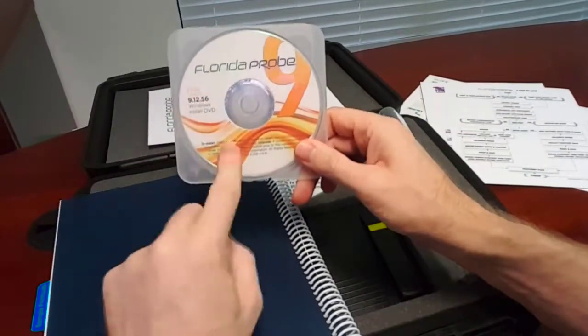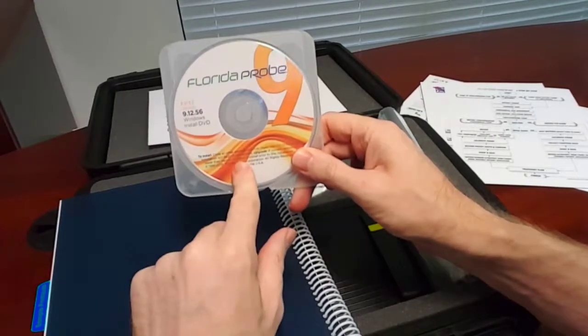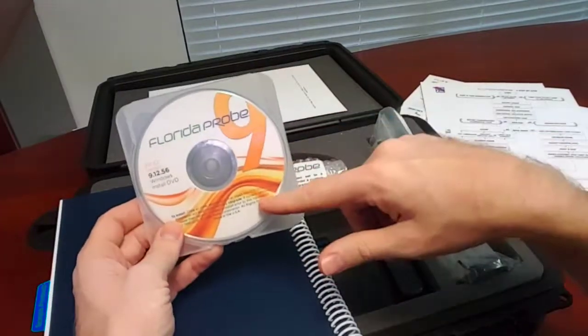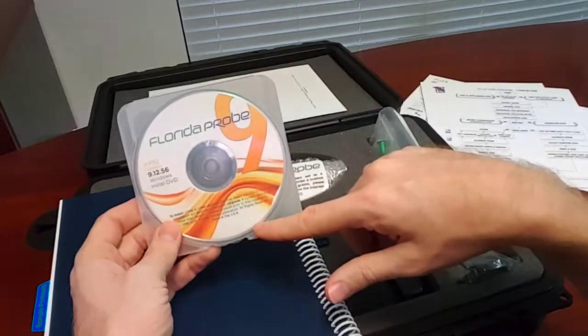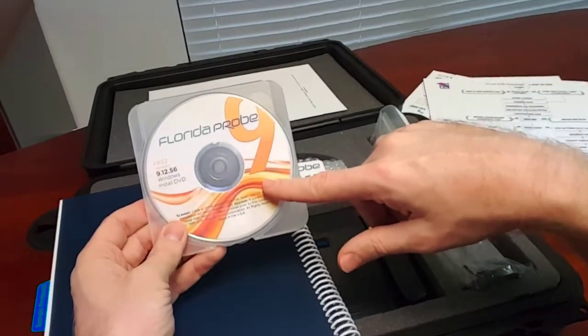This software is designed to run on Windows XP, Windows Vista, Windows 7, Windows 8, and Windows 10, and of course it's being installed on Windows Server 2008, 2012 and up — so no problems there.